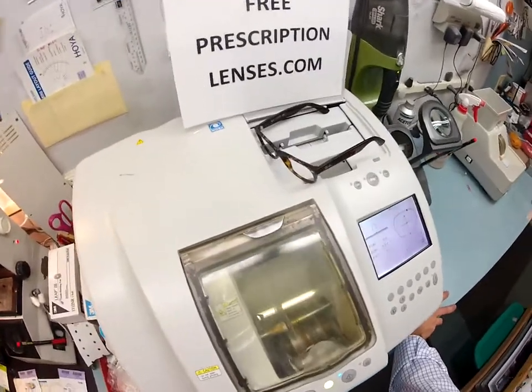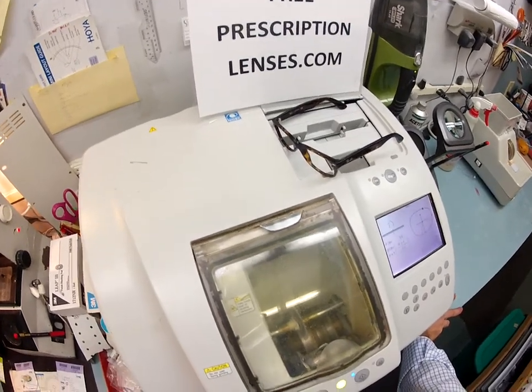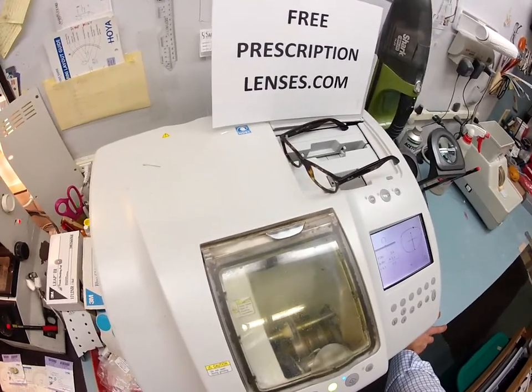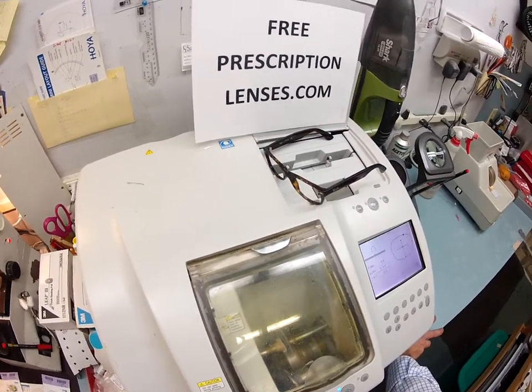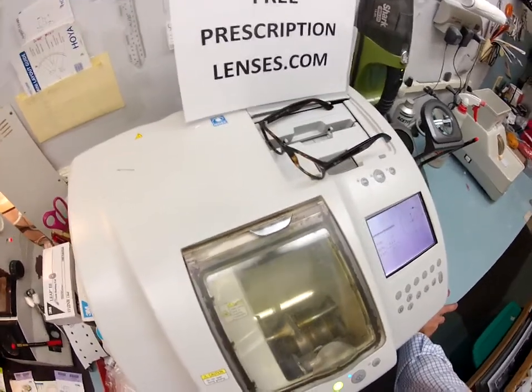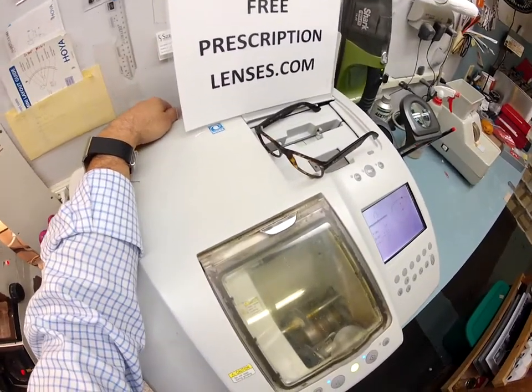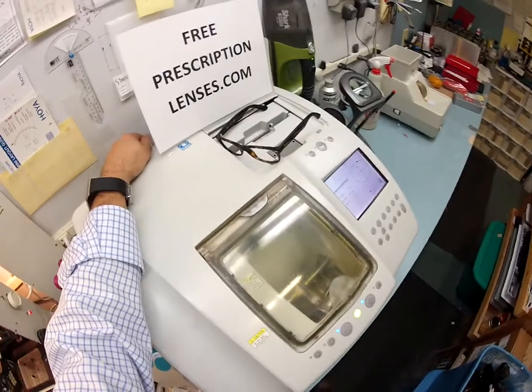Your lenses are polycarbonate material, which is 40% thinner and lighter than regular plastic. It is also virtually unbreakable — your lenses are bulletproof up to .22 caliber and have both UVA and UVB protection. We know what the sun's harmful ultraviolet rays can do to your skin, and your eyes are eight times more sensitive than your skin. So you now have permanent sunscreen on your eyes, which down in Australia you get your own personal sun that follows you around everywhere you go — especially since you're on the water there in Clinton, right above the Gold Coast.